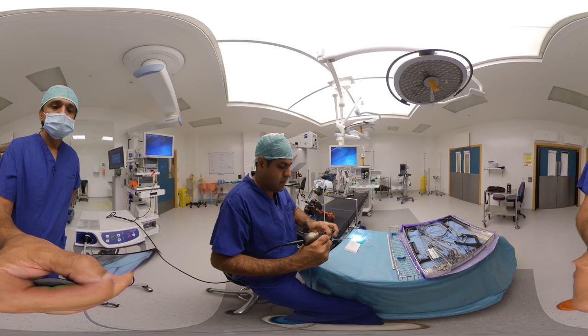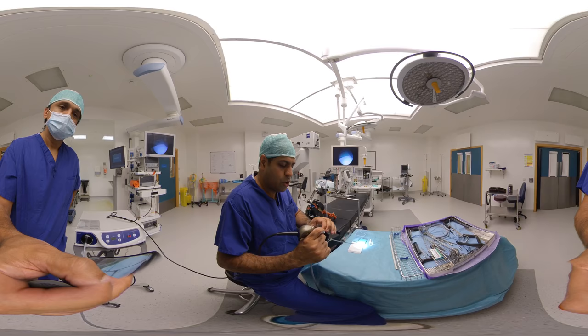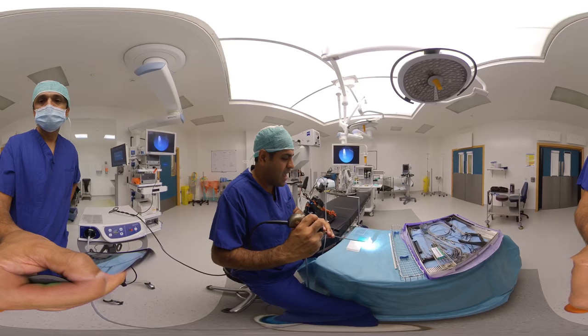If I change the aperture, you can see the aperture is changed. The blue dial is changing the aperture. You want the narrowest possible aperture, because that will give you the best focus, and then we can focus our actual camera using the other dial.